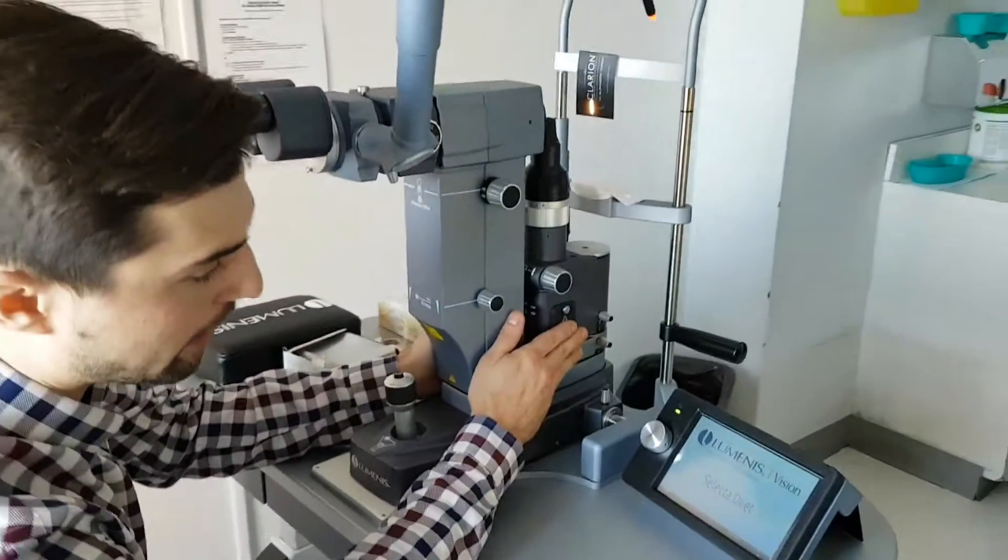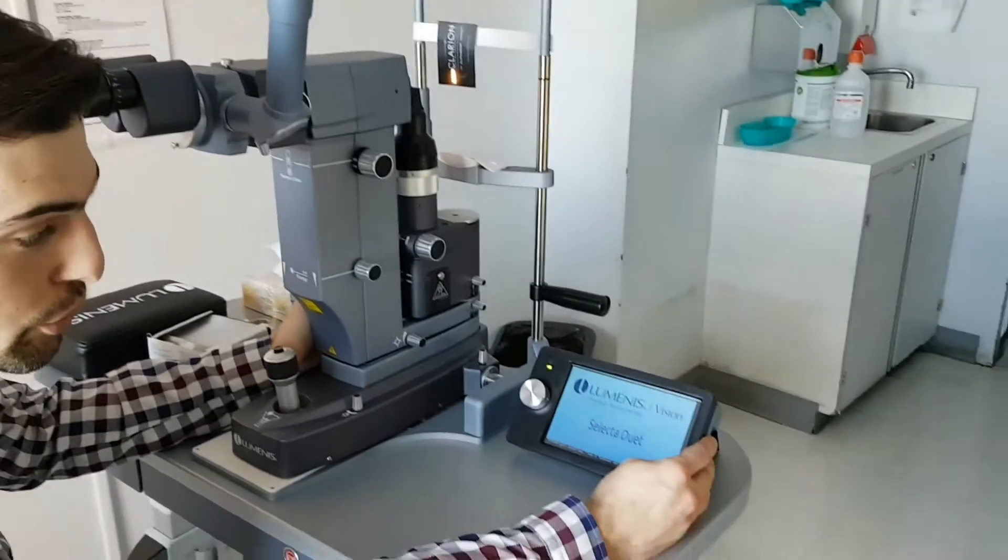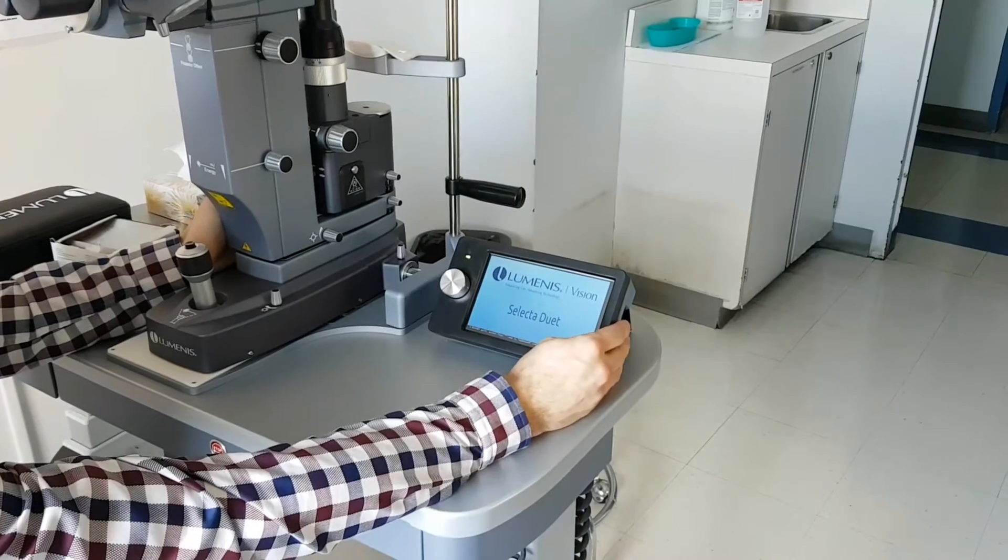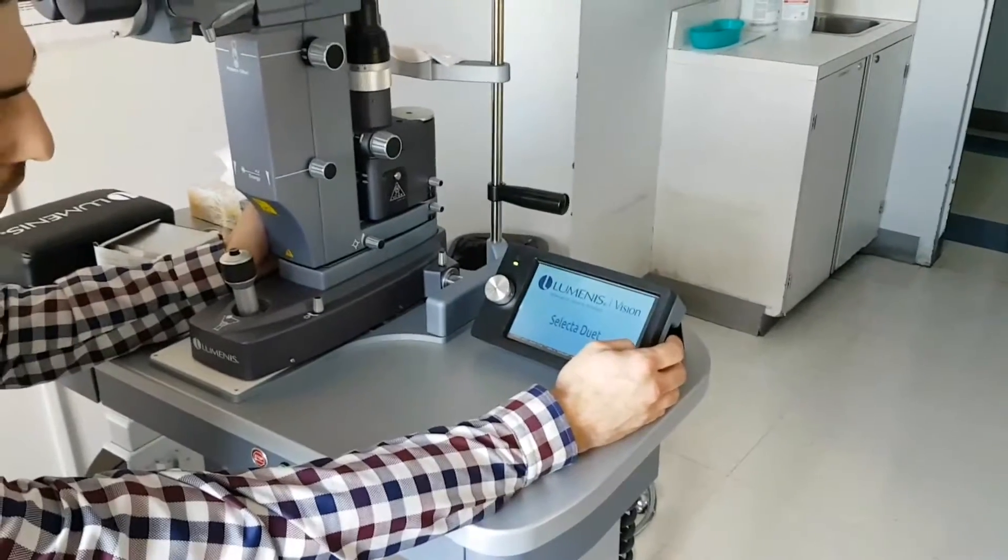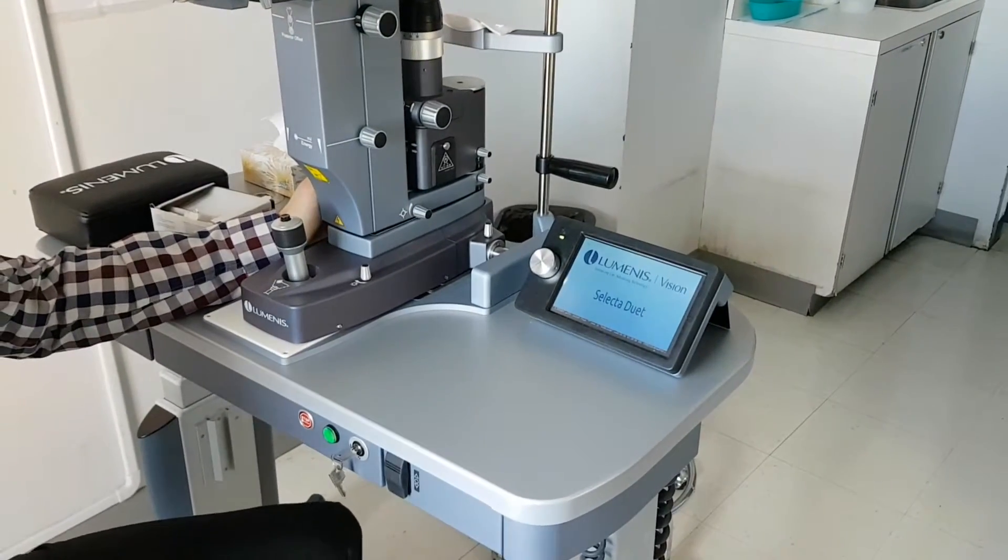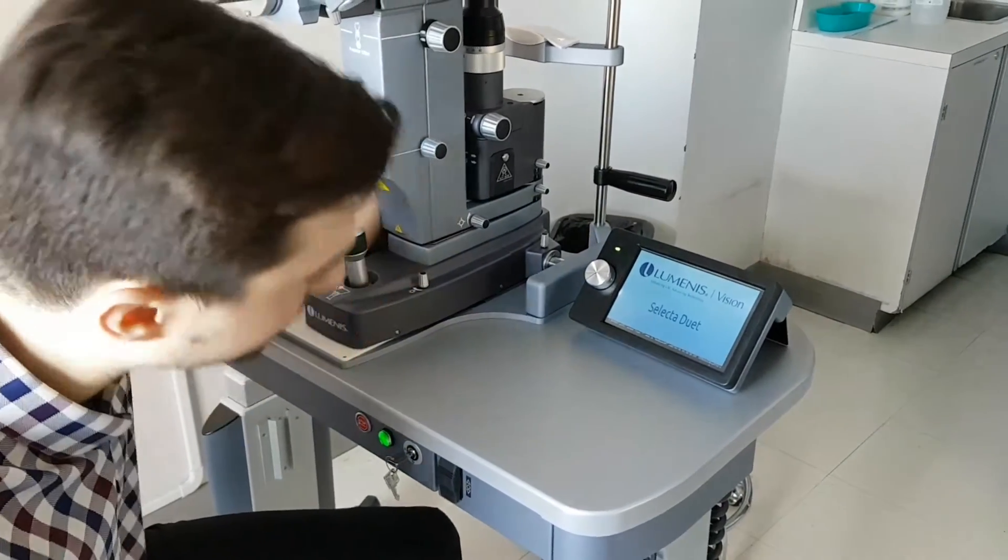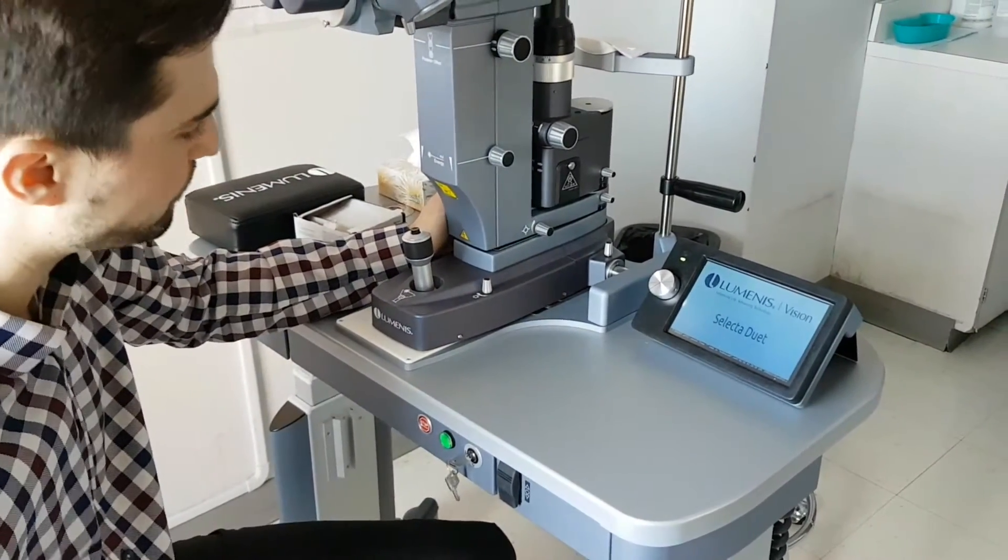There's a computer in there that needs to boot, so just give it a minute and all the software will be running within 30 to 40 seconds.